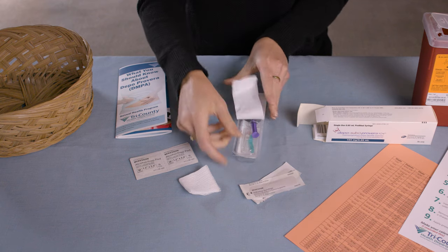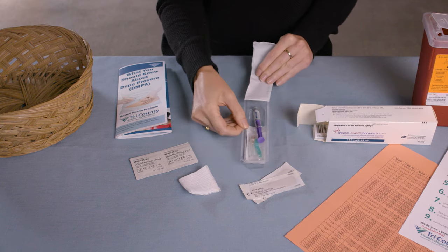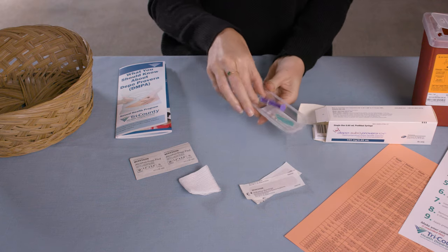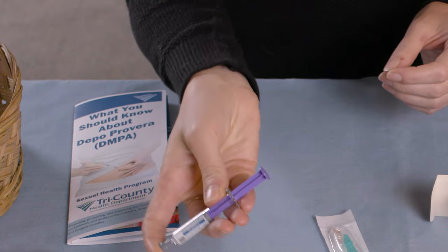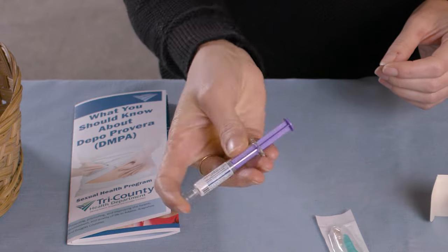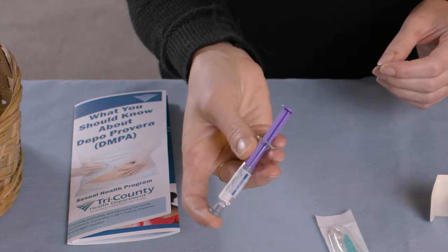Next, you will get the syringe ready for injection. Carefully remove the needle and the Depo-SubQ syringe from the package. Holding the syringe facing upward, mix the medication by shaking it for at least one minute.